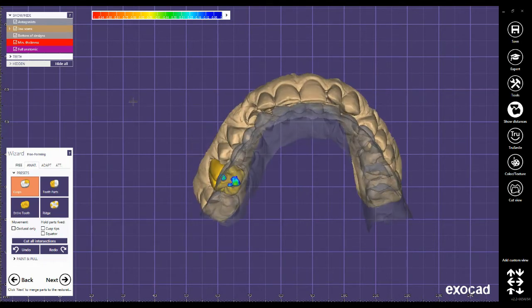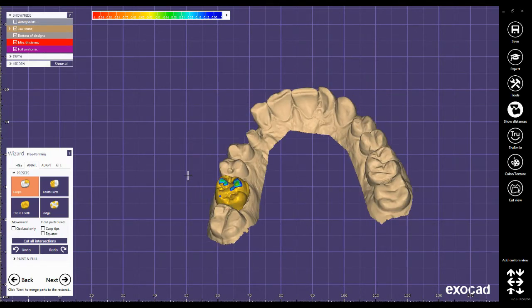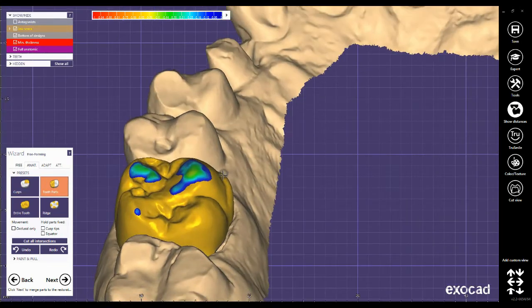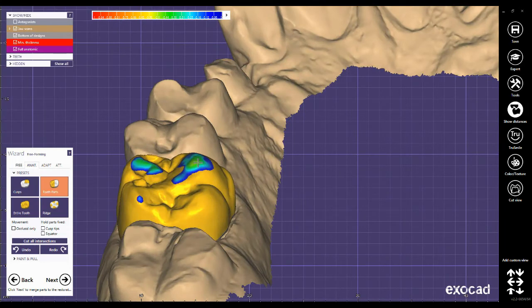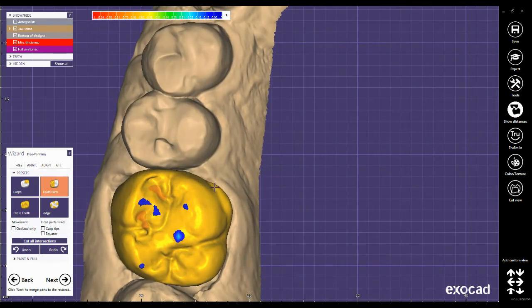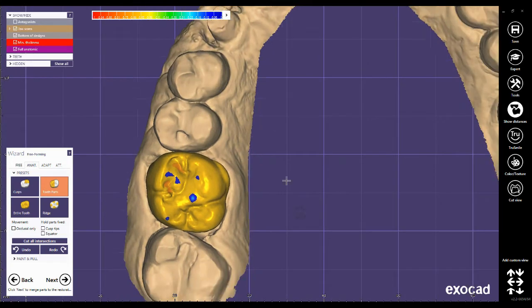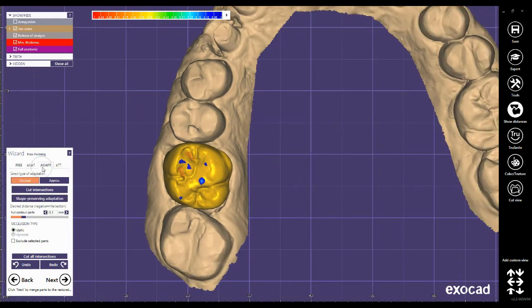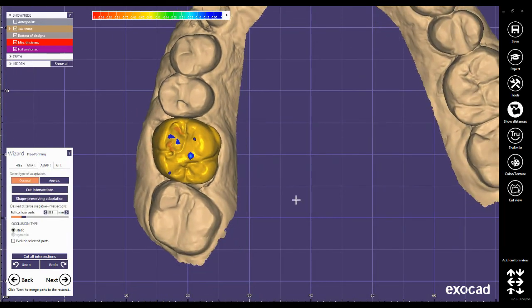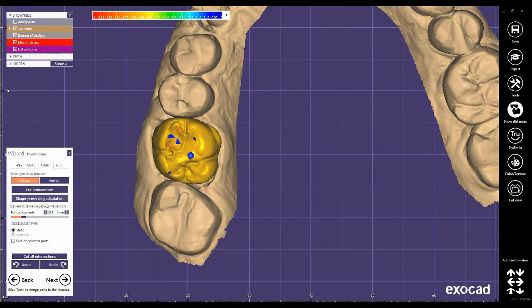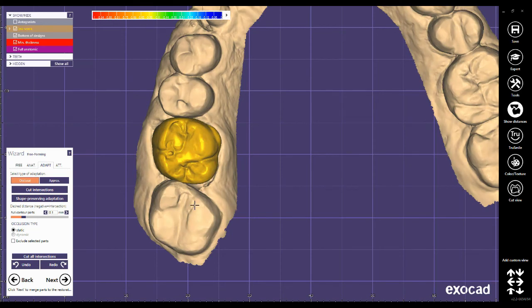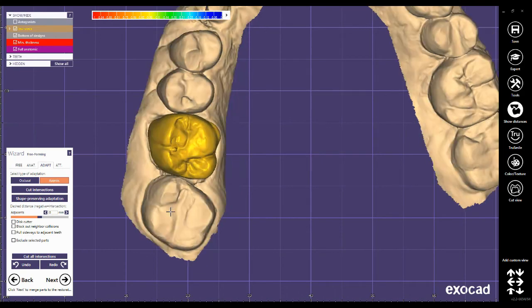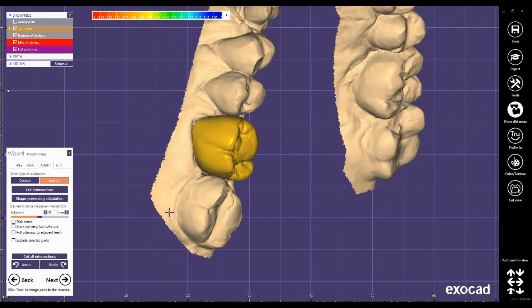Now I need to complete the design with free-forming, the anatomy and the adaptation tools. I use hotkeys to complete the design and hotkeys are explained in a separate video. You can find it in the channel. Cutting these intersections, the proximal sides and also the occlusal side.